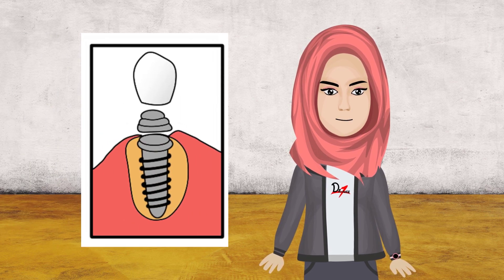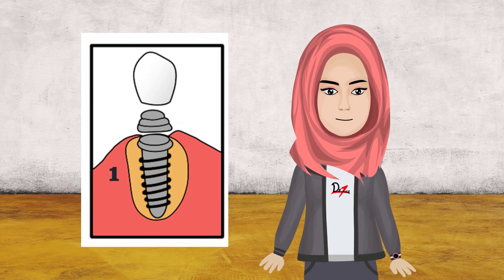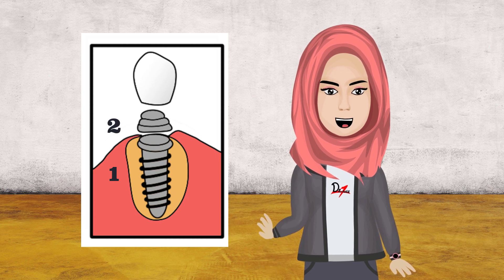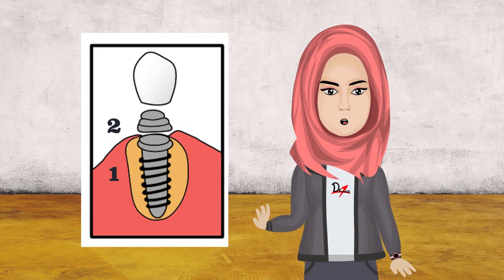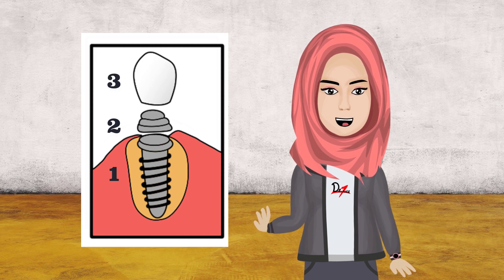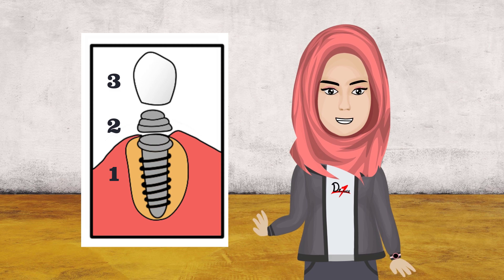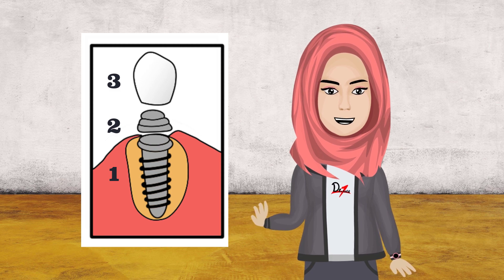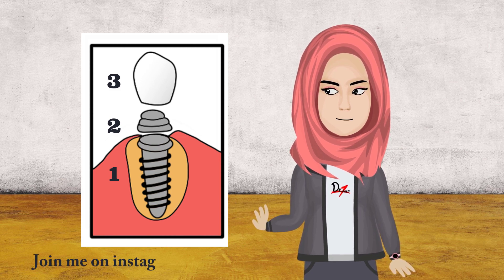Implant treatment has three parts: first, the dental implant which is fixed in your bone; second, the abutment that is placed over the dental implant; and lastly, the artificial crown that covers the abutment. Whether you have a single tooth missing or multiple teeth missing, you can go for a dental implant.